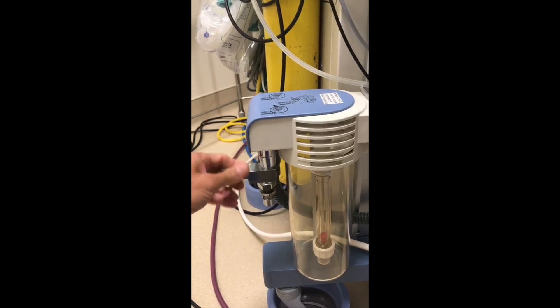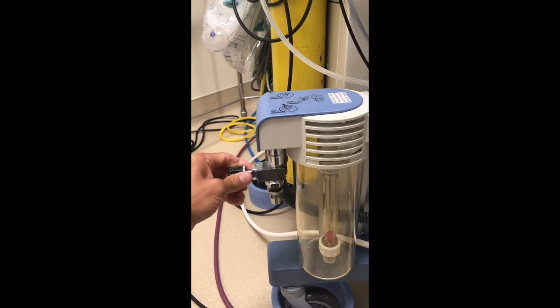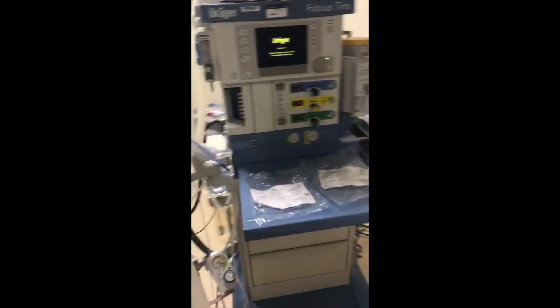That's just to ensure that any excess gases flow out through here. We're filtering on the Y and the expiratory valve, so anything extra during ventilation will come out there. In the ICU, that's okay — not okay in the OR.